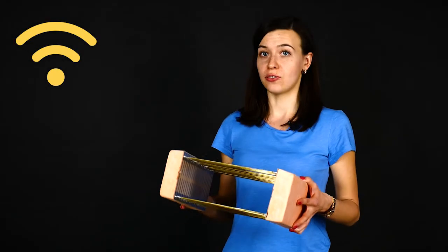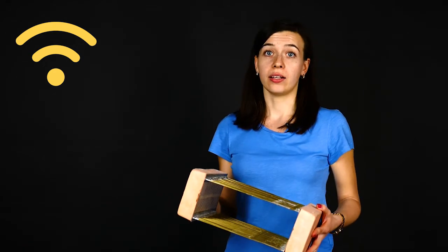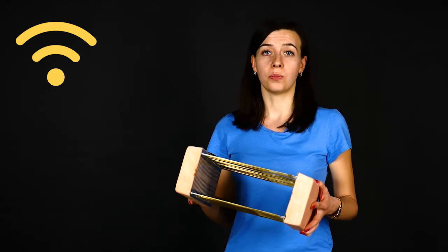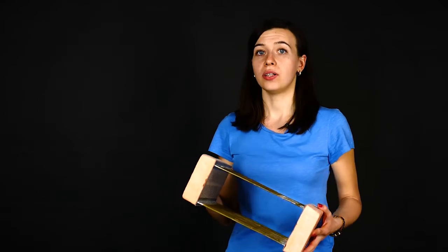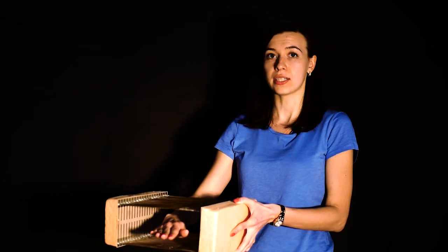We propose to use an alternative approach: wireless coil based on novel artificial materials. This device can replace the standard cable connected coil and it works on an entirely different principle. Imagine that previously magnetic field generated by the birdcage coil was distributed over the entire volume within the scanner, and now it focused only in your wrist area.